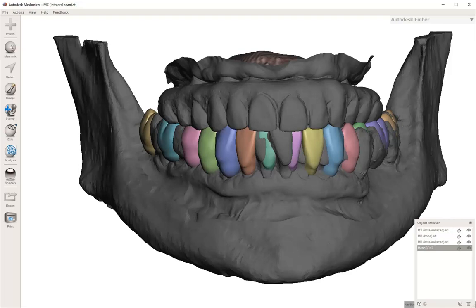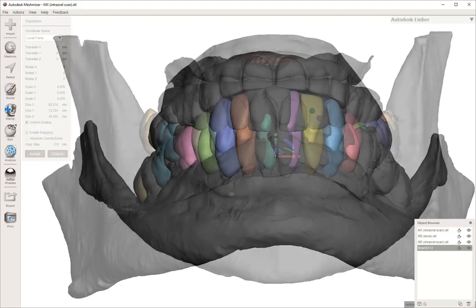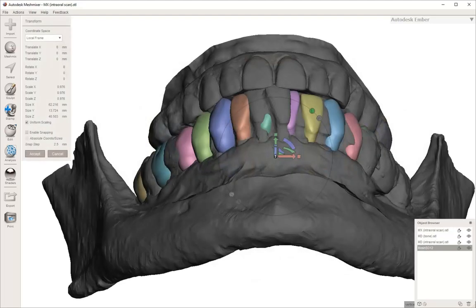Right here, we've turned back on the patient's maxillary arch and we can start to look around and see how the teeth are aligning.